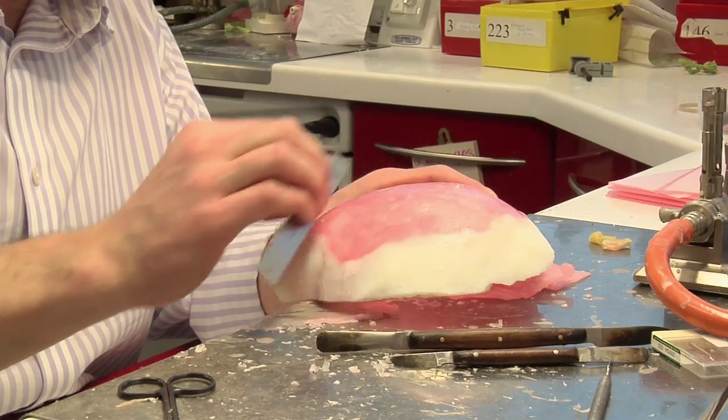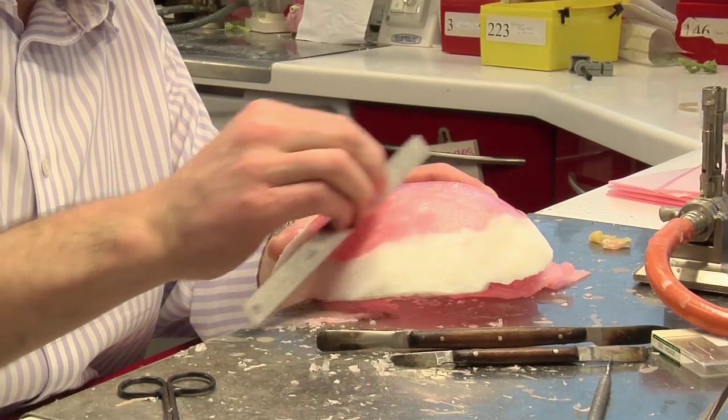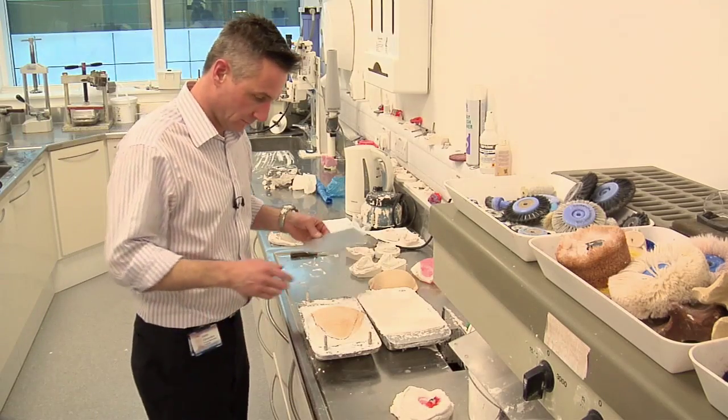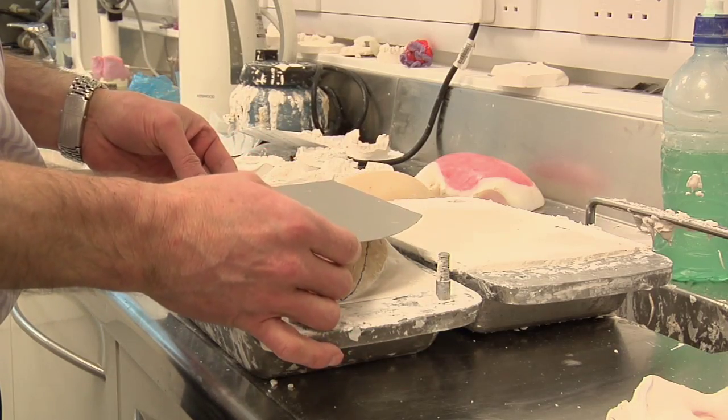Once the wax is all contoured and we're happy with the under-contouring of the shape, we will take this into the plaster room.